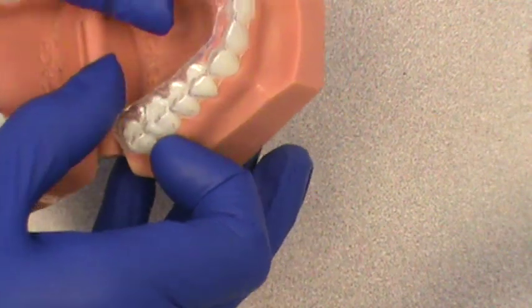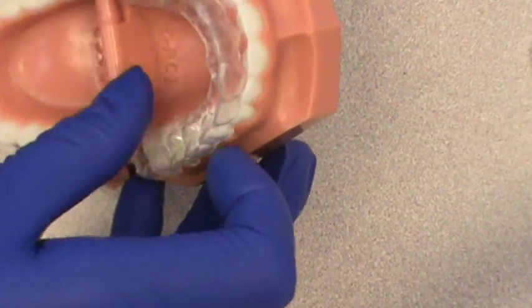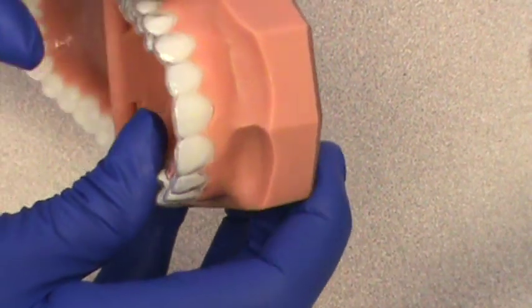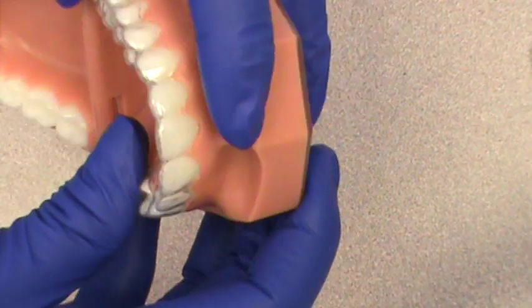You want to make sure you pull down on both sides at the same time and dislodge the retainer. You don't want to just pull on one side because that tends to over time crack it in the middle.